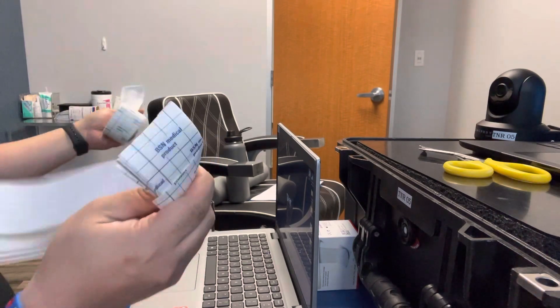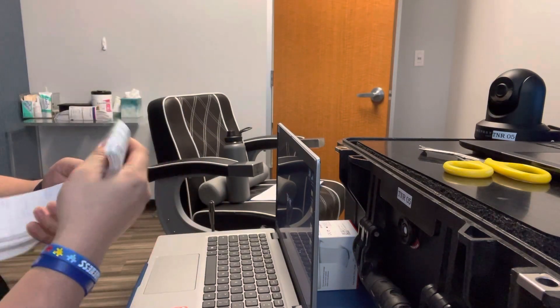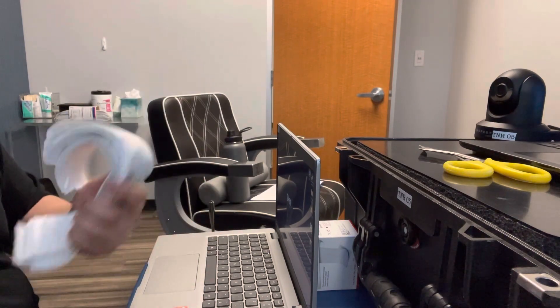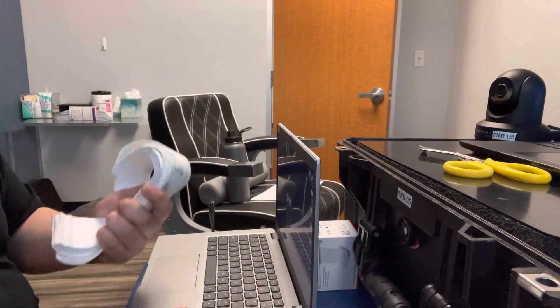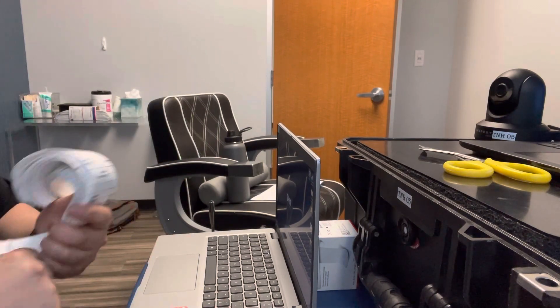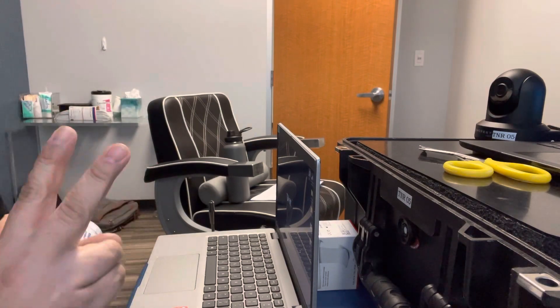Voila. A whole box of tape done. I don't know how long this video took — 3 minutes and 41 seconds. That's still pretty good. But if I wasn't talking and showing y'all, it would have been like a minute and 49. Right, Val? Shout out. Thank you.